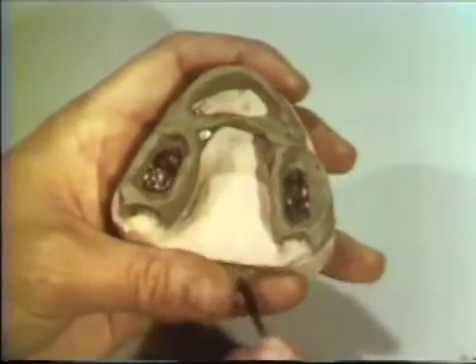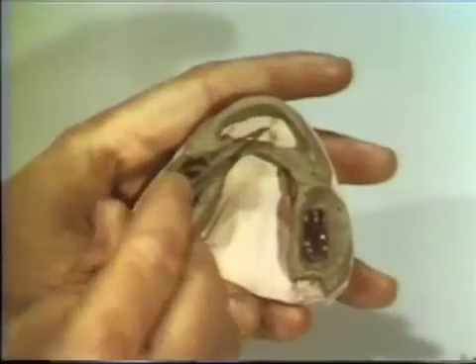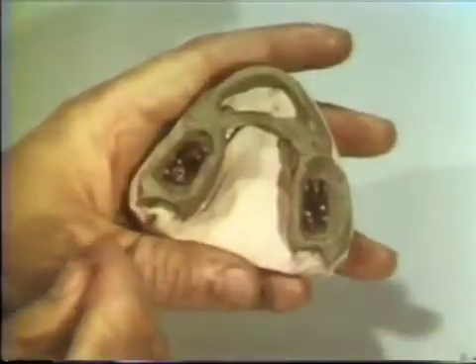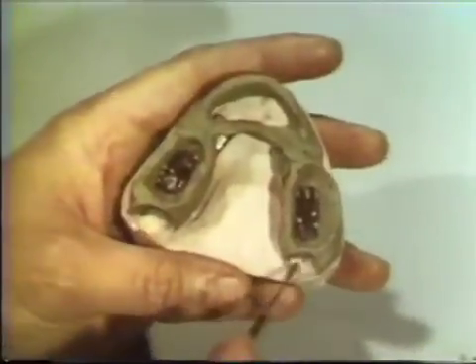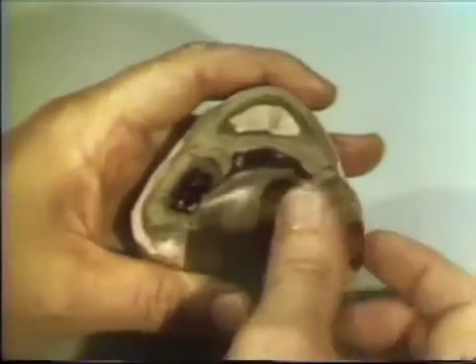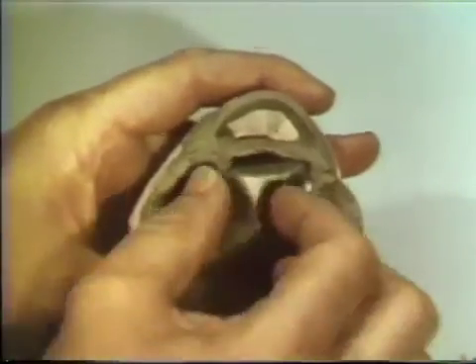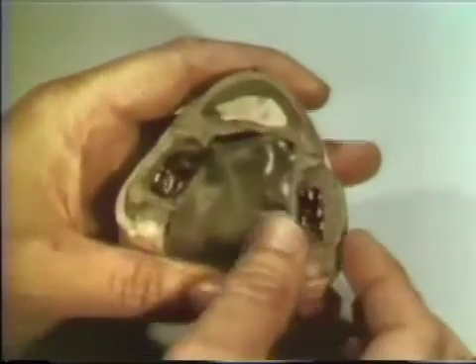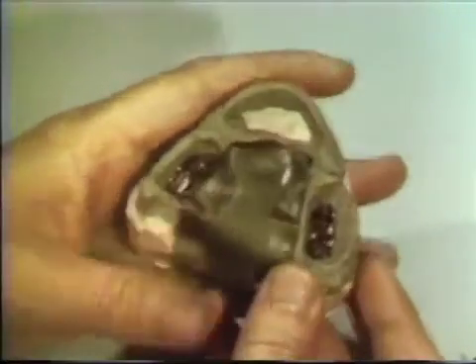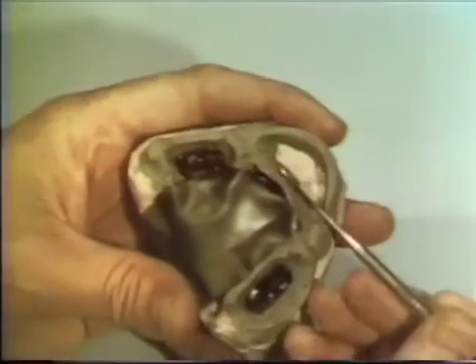An anterior keyed stop and two posterior stops are provided to assure that the proper vertical relation of the mounting is maintained at all times. A wax form is placed in the tongue space of the curing cast to prevent the investing stone from flowing into this area and obscuring vision during the setting of teeth.